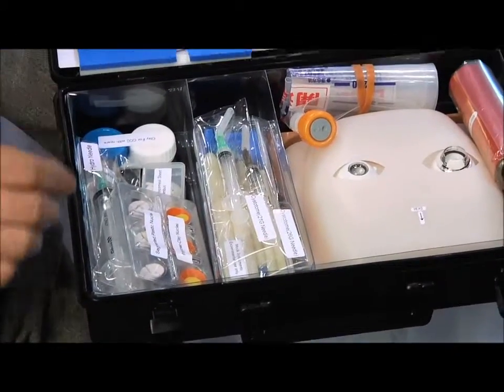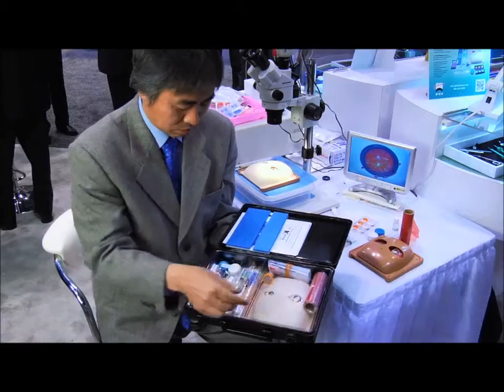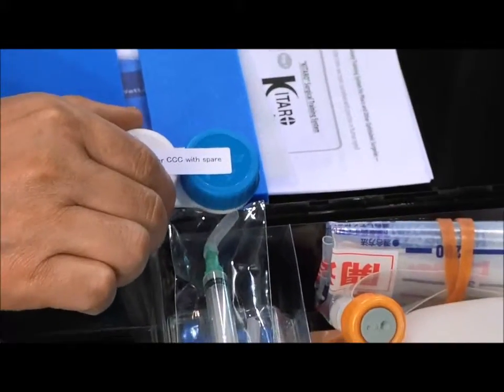This is the anterior capsule film. This polyester film has a special two-layer structure and is placed over the reusable polymer clay cortex to reproduce the capsulorhexis in a way very similar to the human eye.